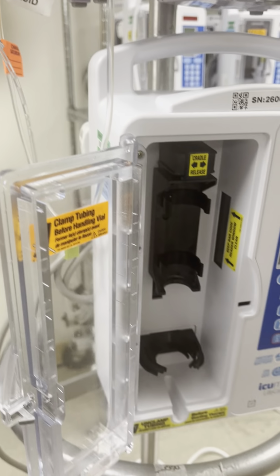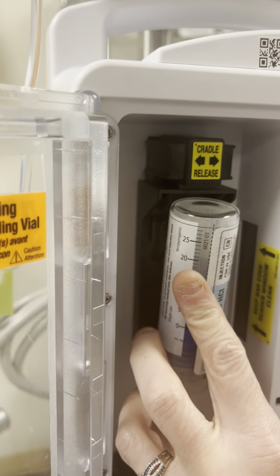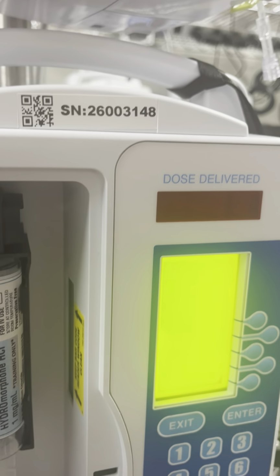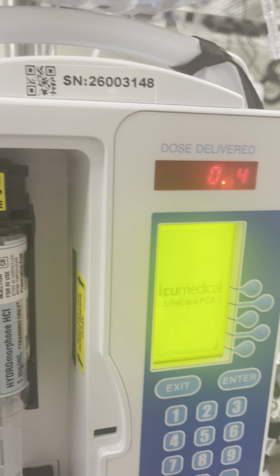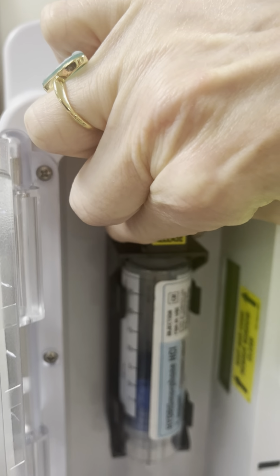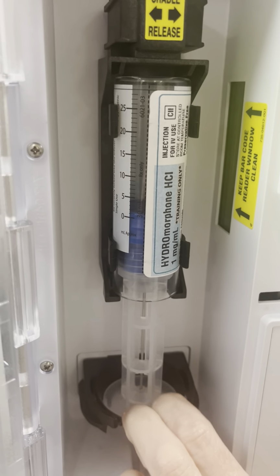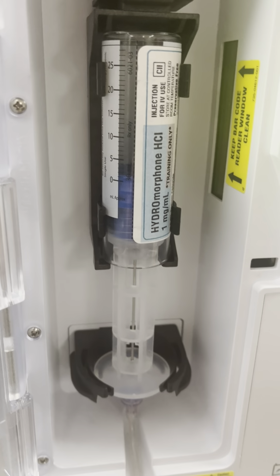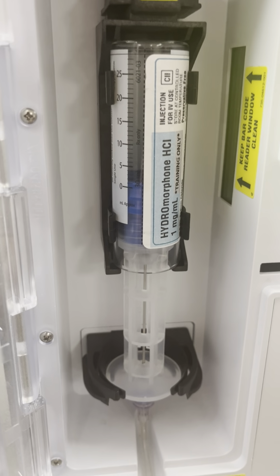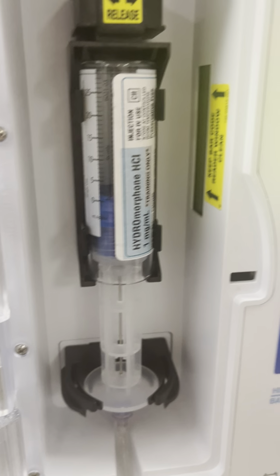I will have Christine demonstrate here. Place the vial bottom part first and then into the top. The machine will turn on once the barcode gets read. And then for ease of sake, move the two levers, push them in, and push the syringe all the way down. Then use the plastic part to seat it into the bottom portion of the machine. You should hear a click. If you do not hear a click, restart.